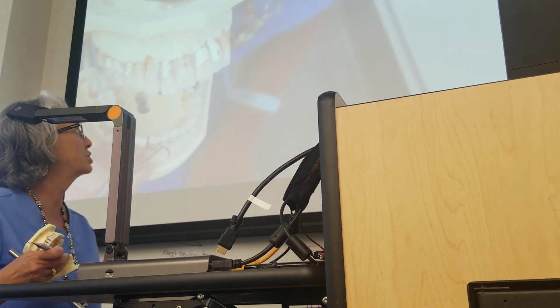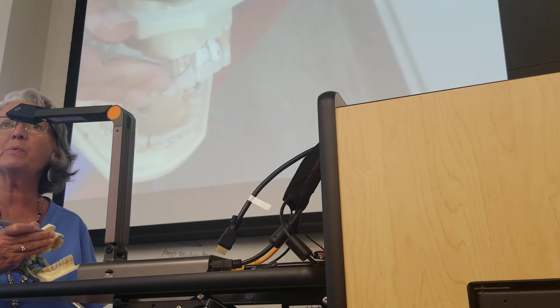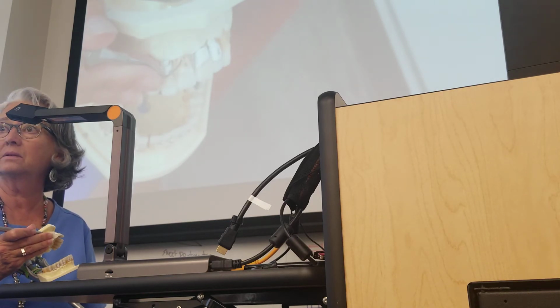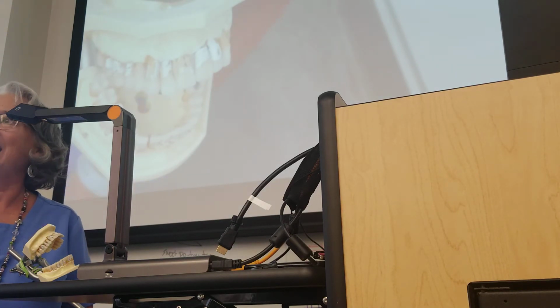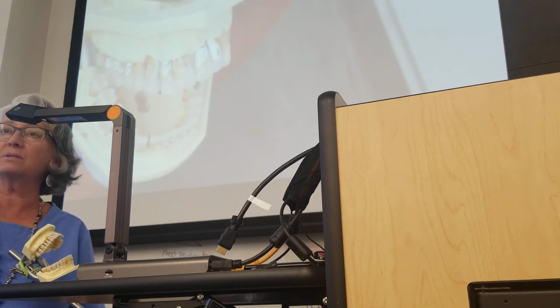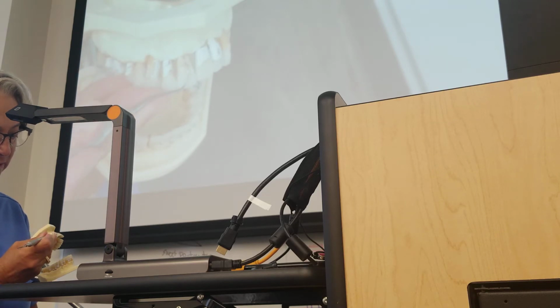Now let's talk about the horizontal stroke up here, because I think you can see this better. Remember, we're going to do the horizontal stroke, line angle to line angle. Outside blade? Yes, outside edge. Just make sure that you have the outside edge, and that is what we're going to do, line angle to line angle.